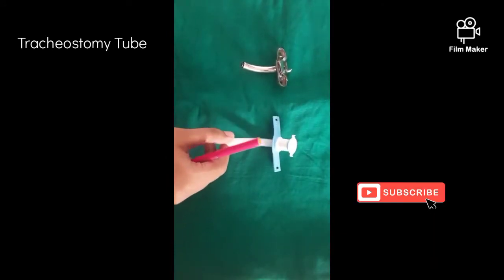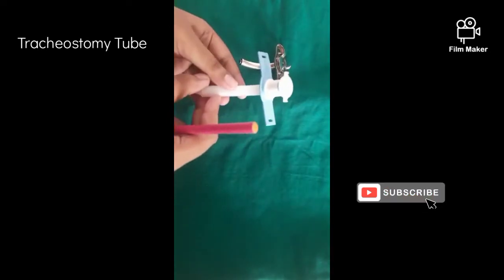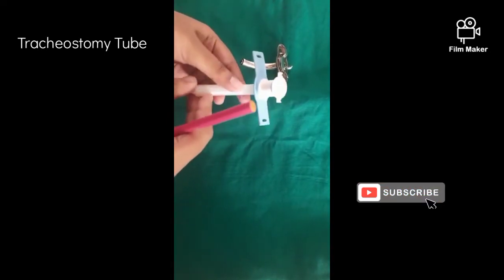Location: Tracheostomy tube is located between the second and third tracheal ring.